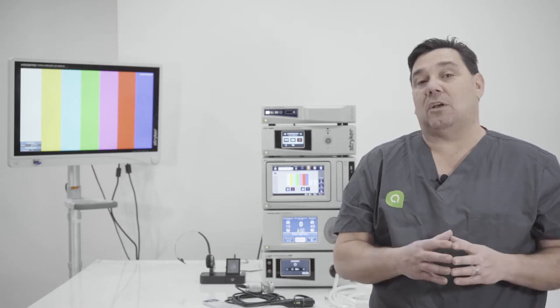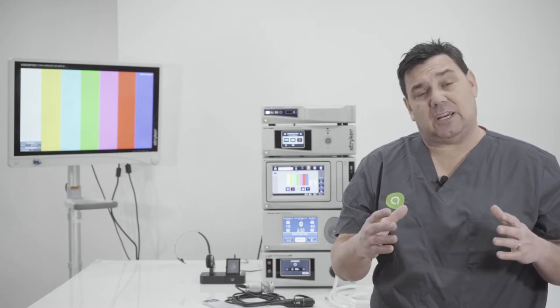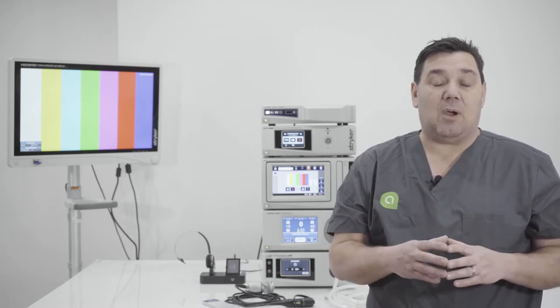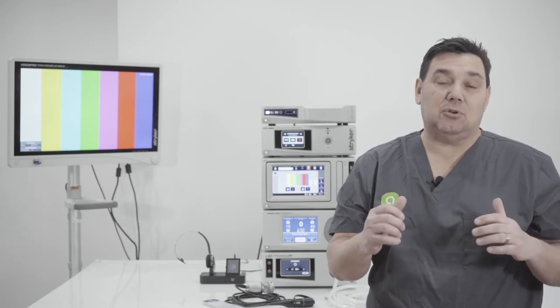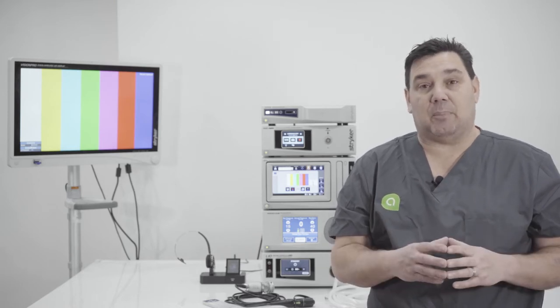One of the biggest ones right now is the DaVinci Robot. A lot of times surgeons will start the case with a Stryker video system and then switch over to the DaVinci Robot. With the SDC 3 you have the capability to capture two independent signals at the same time and overlay them for picture-in-picture capabilities.